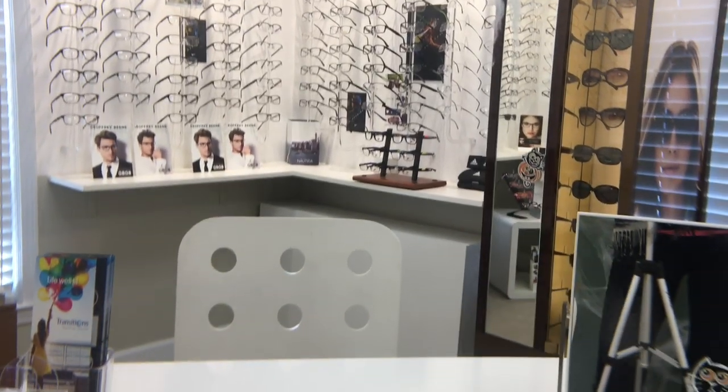Hi, welcome to iTalk. Today we're going to look into what it's like to use a progressive lens. You just picked up your new pair of progressive glasses, you put them on, and what is going on? Why does my world look like I'm seasick? Well, there are a few easy explanations for why this is happening.